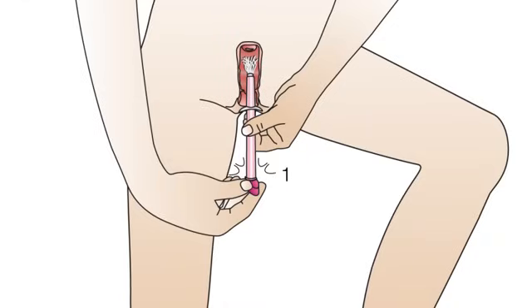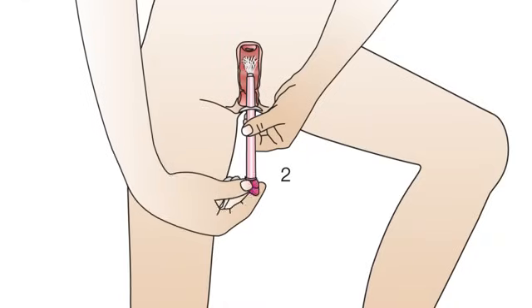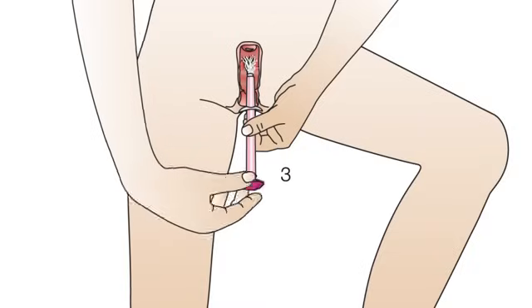Turn the pink plunger five rotations in the same direction. After each rotation, you will hear a click. This helps you count the rotations.